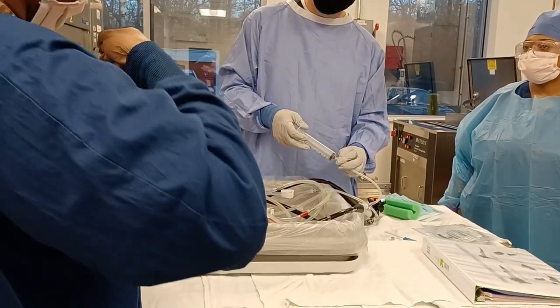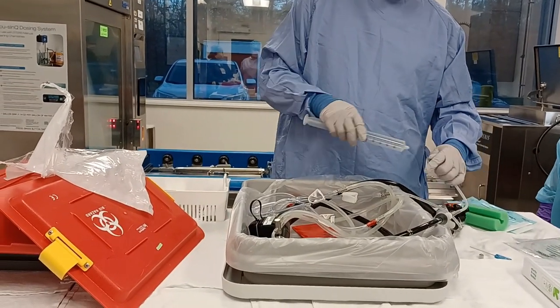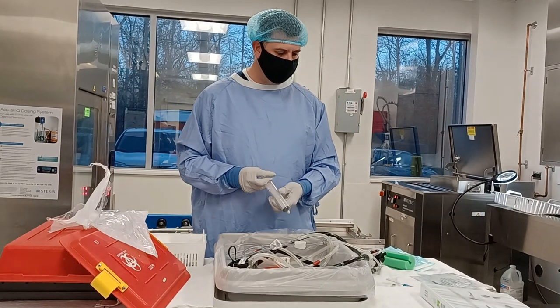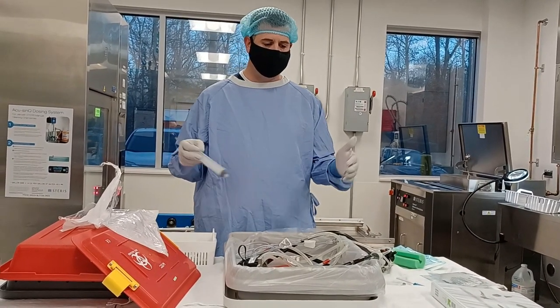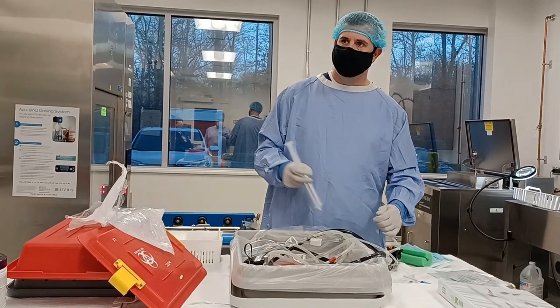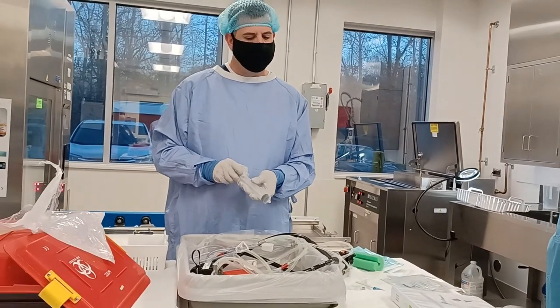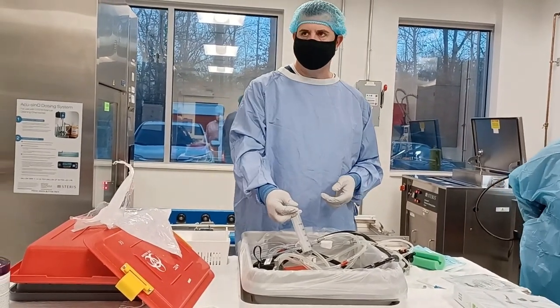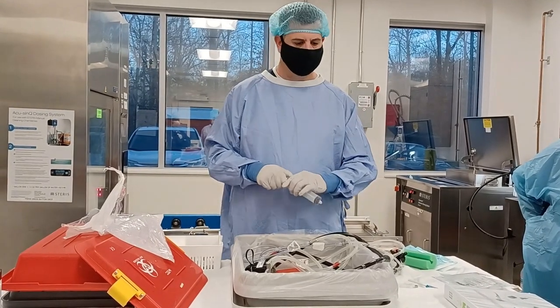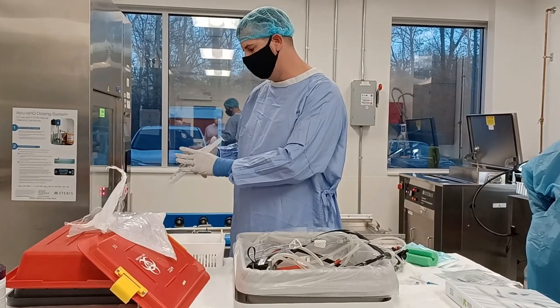When you push the fluid, should you drag the air out or take the whole syringe out? I would just take the whole syringe off, detach it, and draw it up again. When you are aspirating any scope, always make sure whatever fluid you aspirate and pull up into the syringe, flush it into a different basin — not back into the cleaning water. Put it into an empty sink, rinse it, or flush it into a trash can. You don't want any debris going back into the cleaning water when you're cleaning the scope.